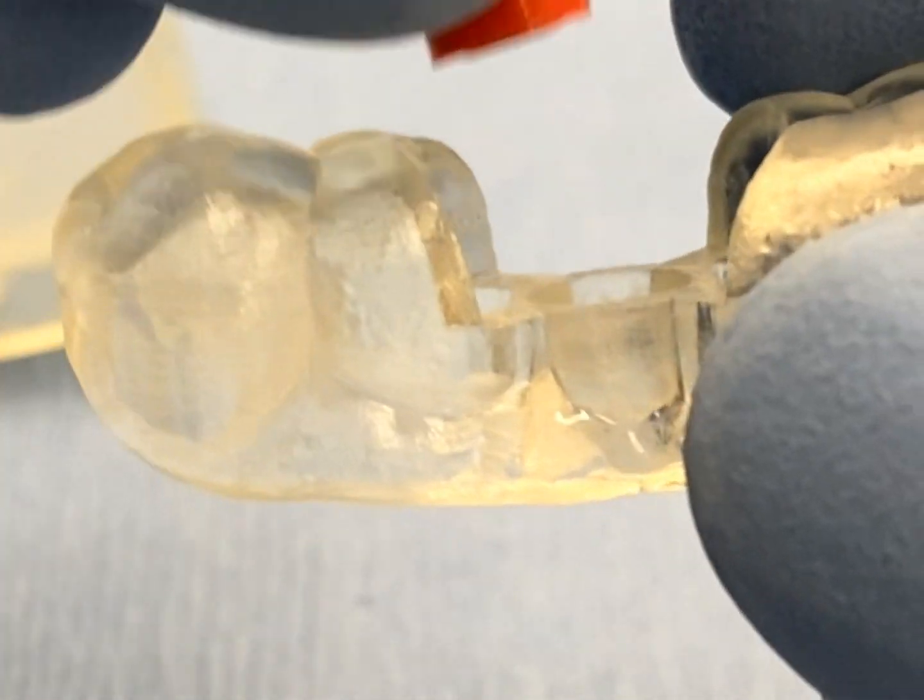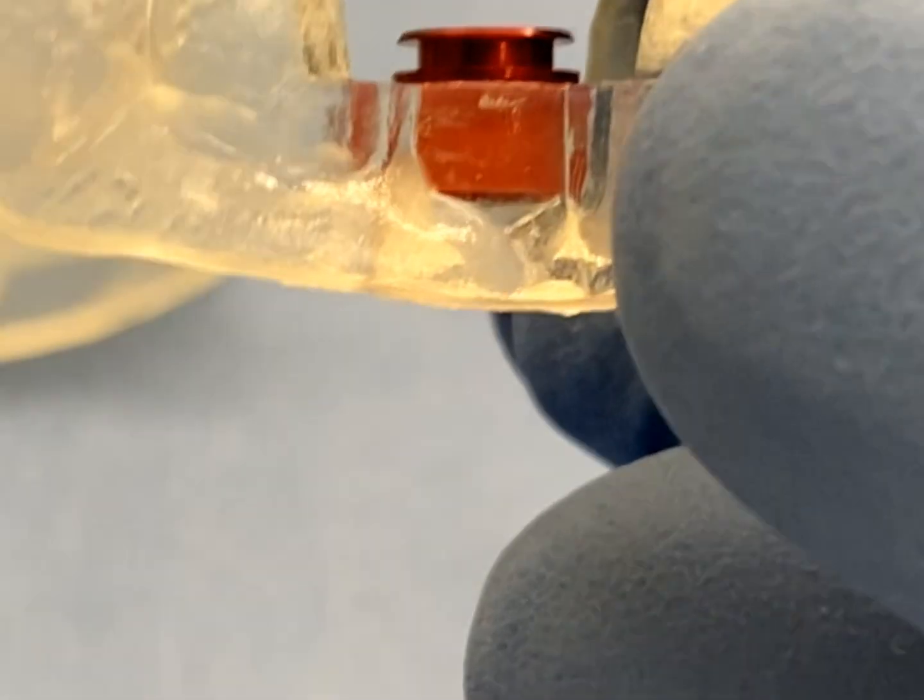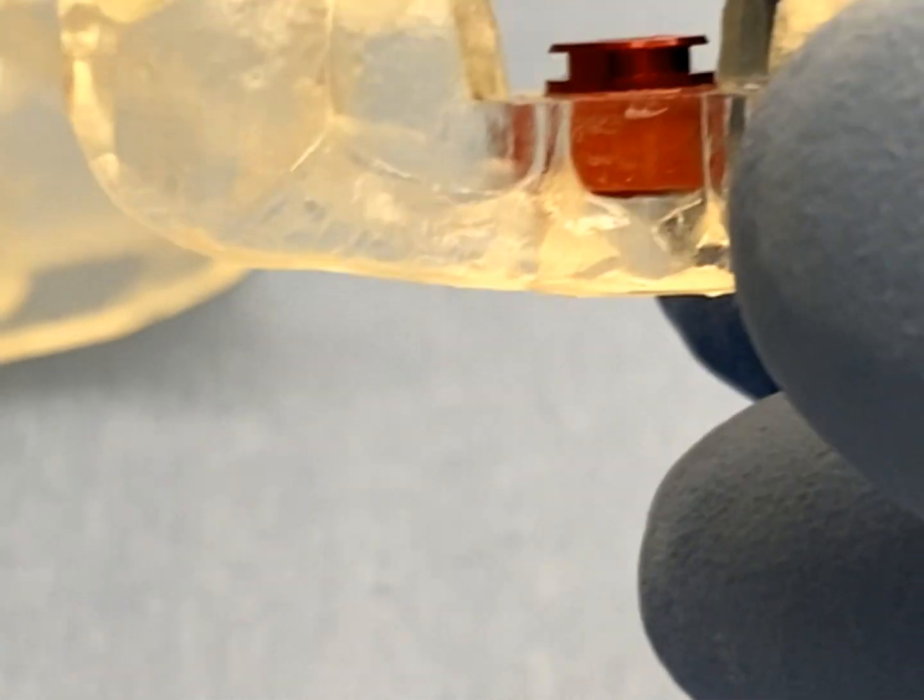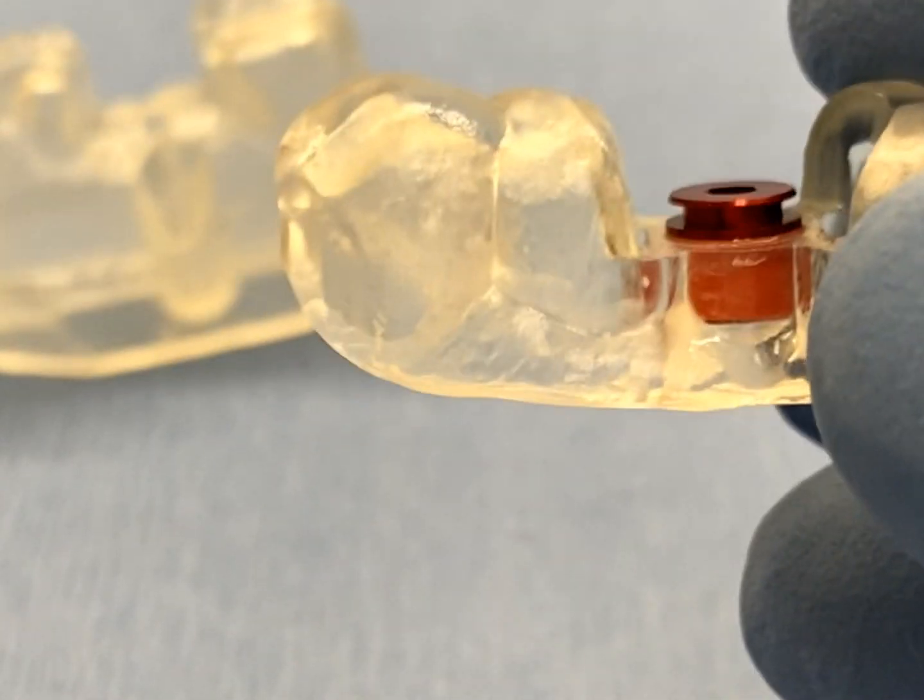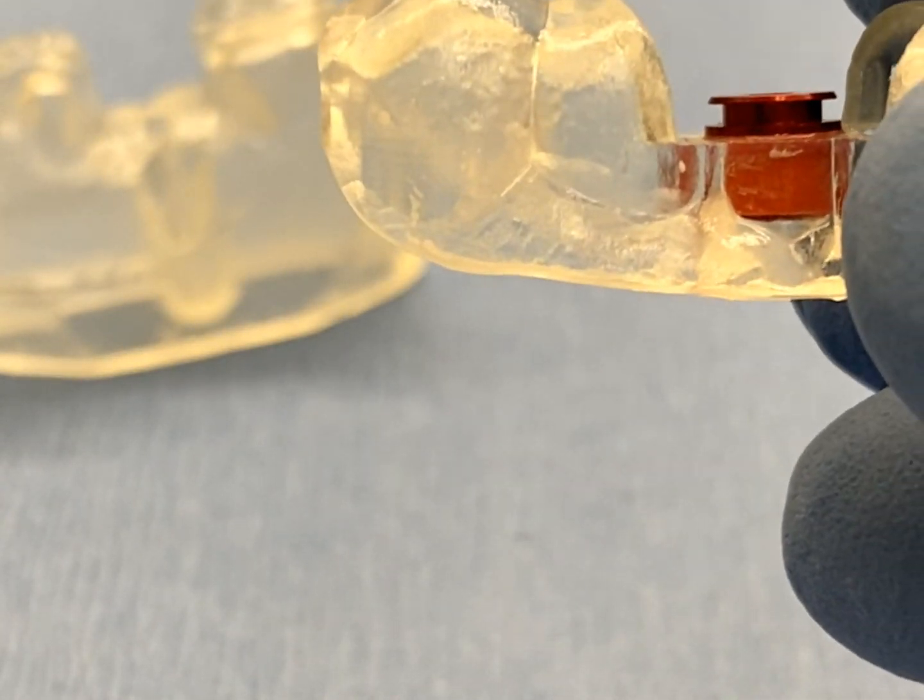Then, reinsert the assembled GRS unit into the guide tube and position the GRS surgical ring so the upper surface of the ring is flush with the upper surface of the guide tube. Any unnecessary or excess adhesive should be removed at this time.